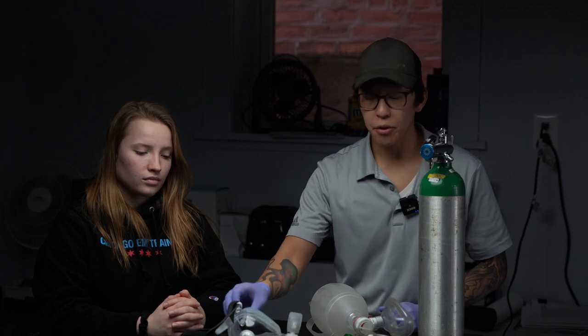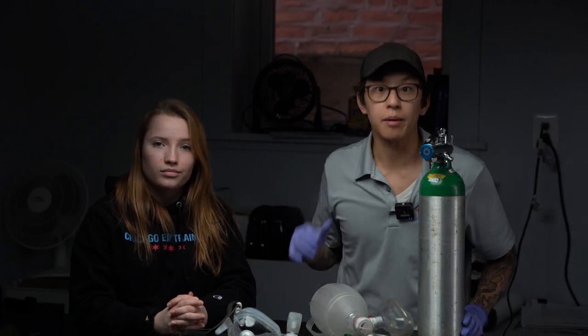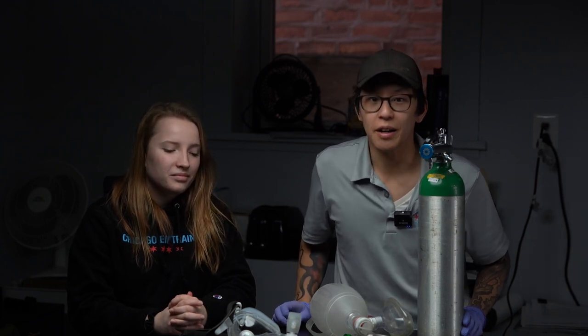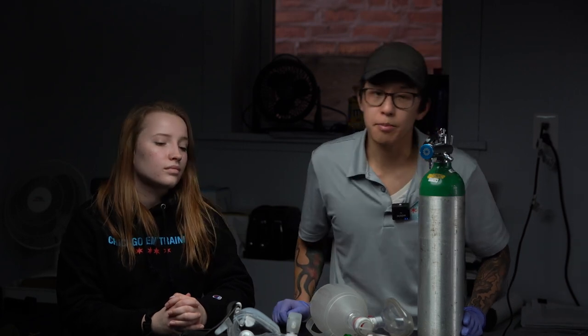Let's talk about three different indications for using CPAP. The first one is pulmonary edema. Pulmonary edema is the medical term for fluid in the lungs. If we were to assess lung sounds and heard rales or crackles — it sounds like milk being poured on Rice Krispies, that crackling sound — we want to utilize CPAP to force that fluid out of the alveoli back into the pulmonary circuit. So that's number one: pulmonary edema.